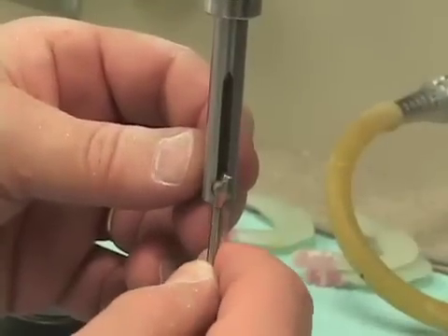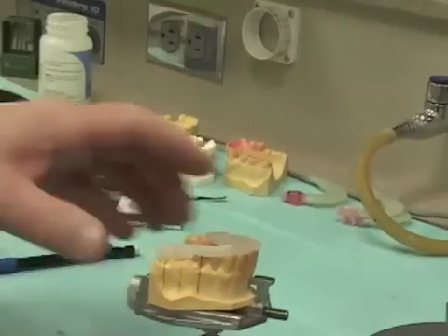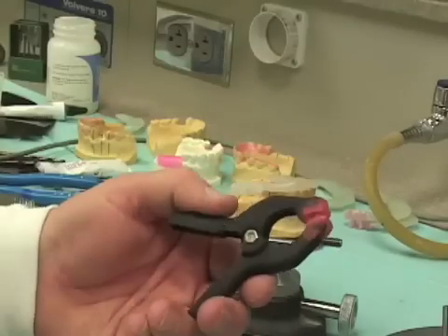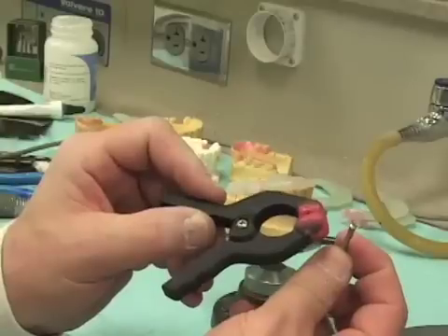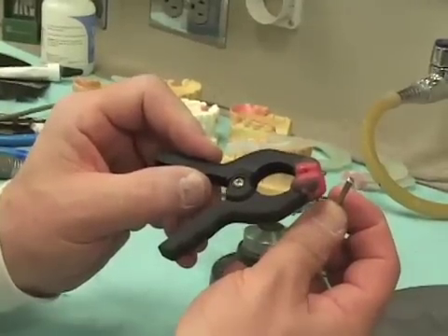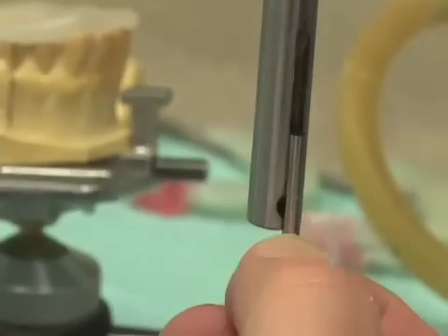So at this point, our choice is either to go to the drill press, or also available from the desk is a clamping device that I have fabricated. This clamping device does a good job of holding the 3.5 millimeter and the 4.2 millimeter drill blank against our vertical spindle of our surveyor.